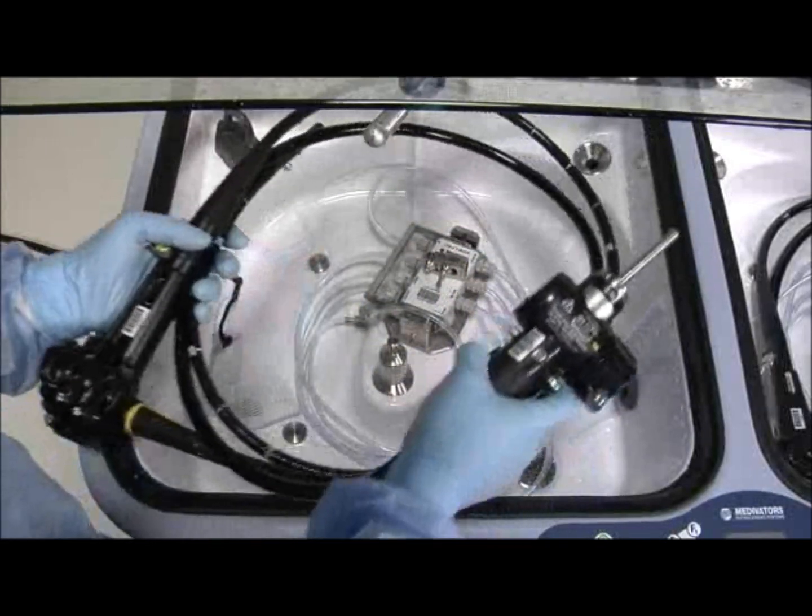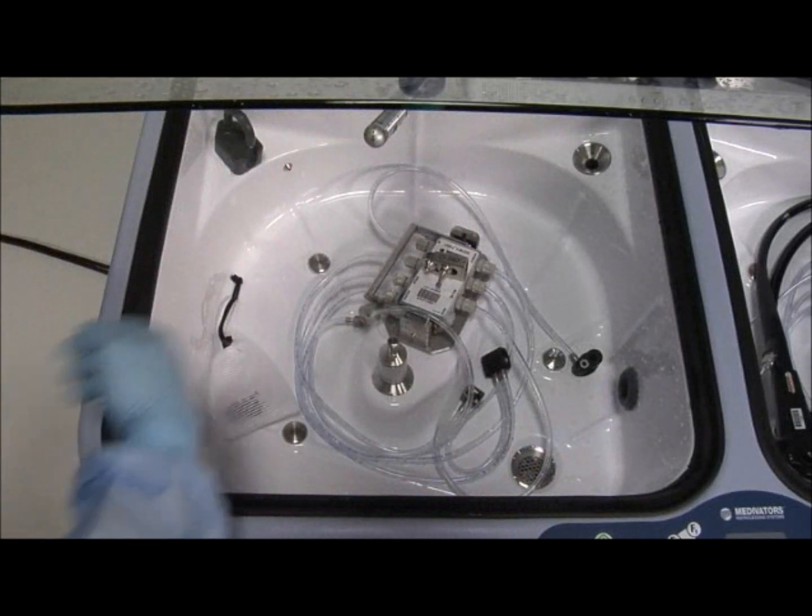Remove the endoscope from the basin and thoroughly dry all surfaces with a clean, lint-free cloth. Remove the accessory bag and dry and store the parts.